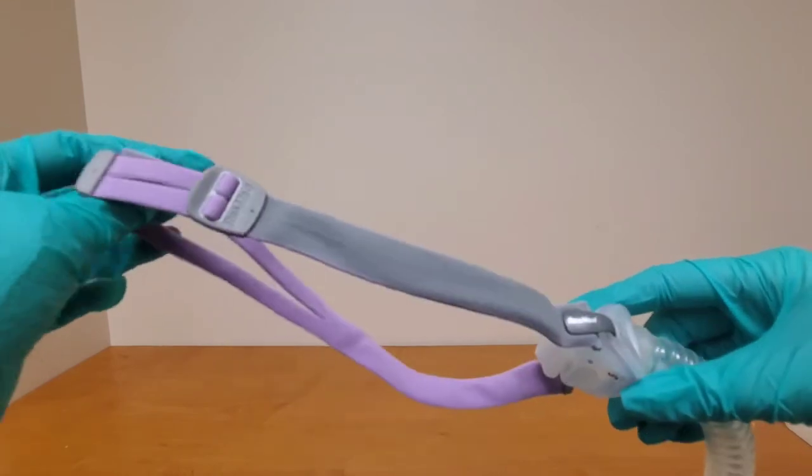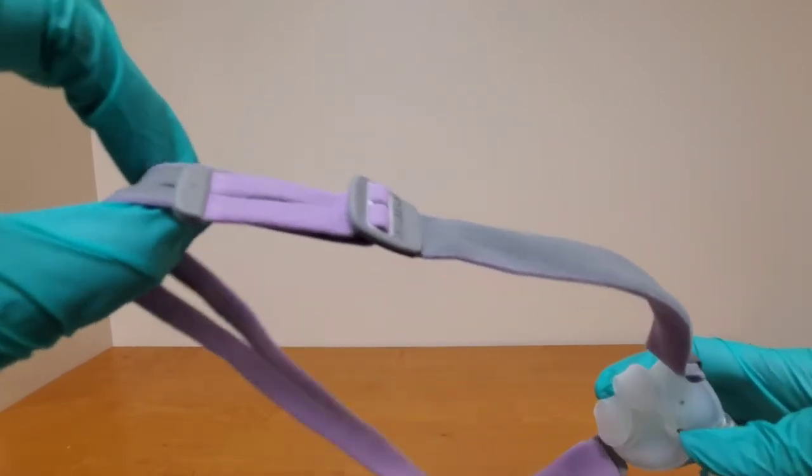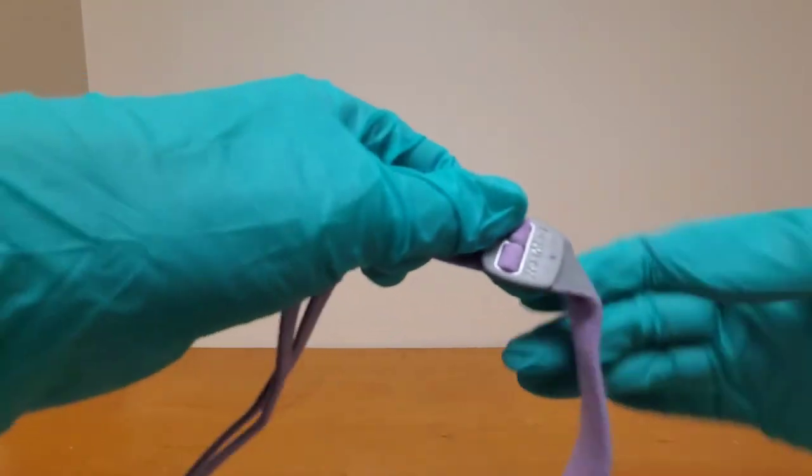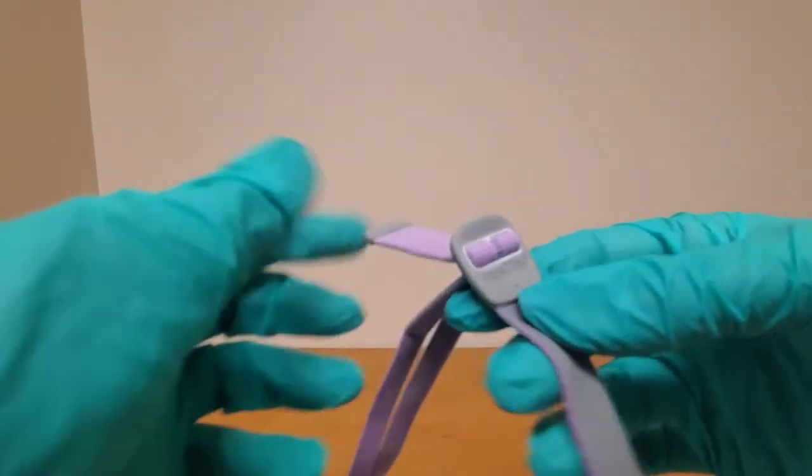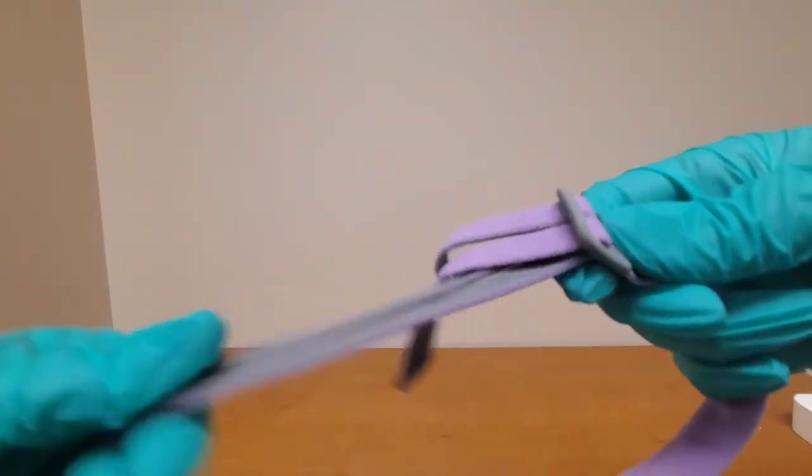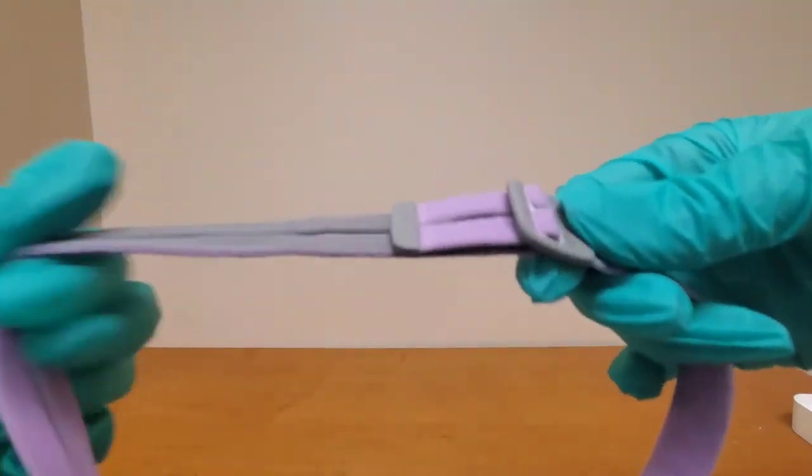We're going to take a look at that strap, you can see where they built the piece in. It's super attached, it's not clipped on, it is a part of the end of that strap and this is fed through and you simply give it a tug and you can adjust the length.